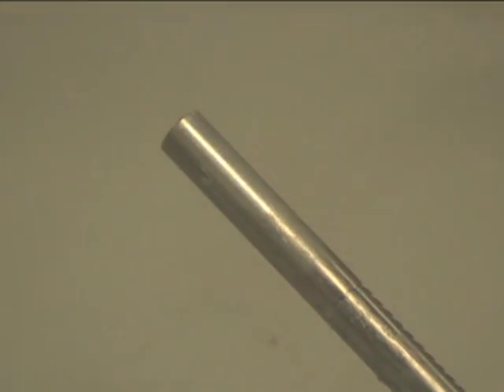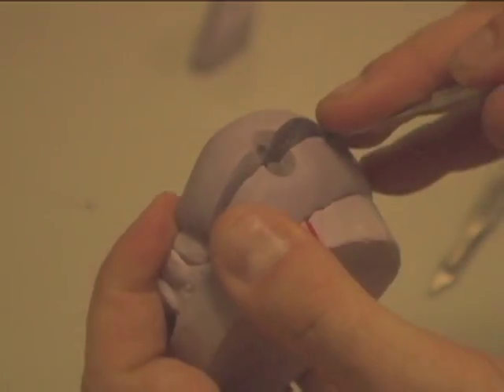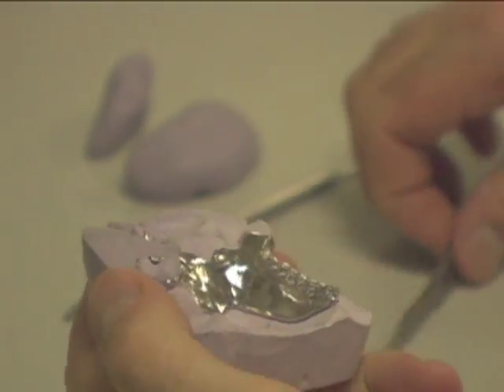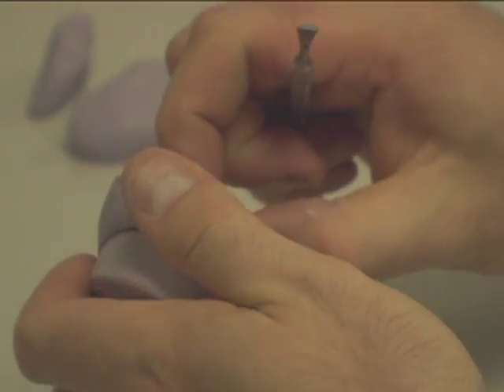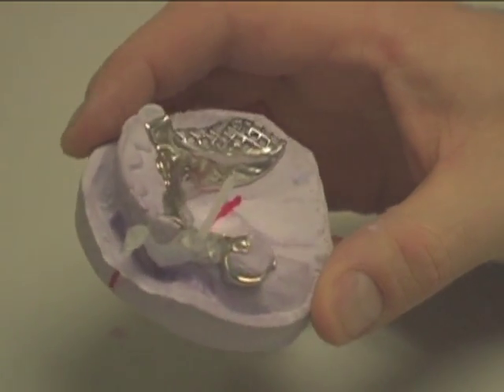After material has cooled for about 5 to 10 minutes, section the matrix using a thin bladed knife. Cut a section with the knife, and using an instrument, pry off the pieces of putty. Do this until all putty is gone. Repeat on the second putty matrix. Here we have a completed injected clasp. Notice the button.